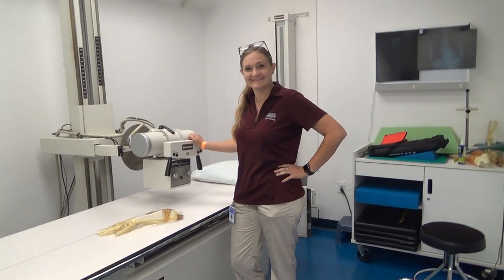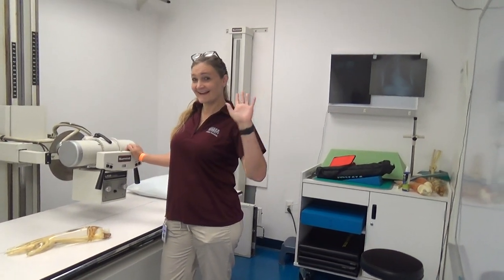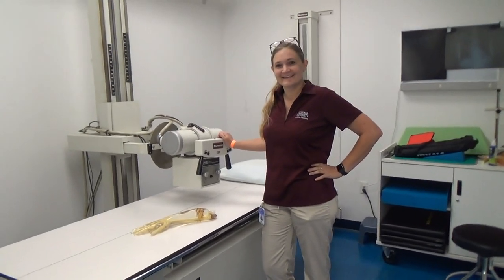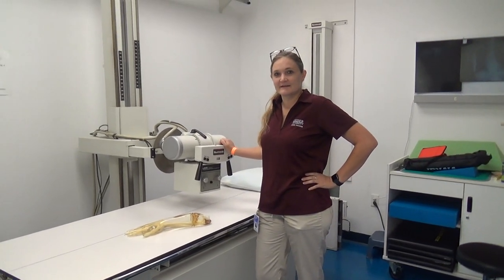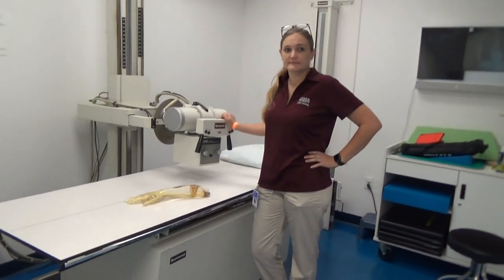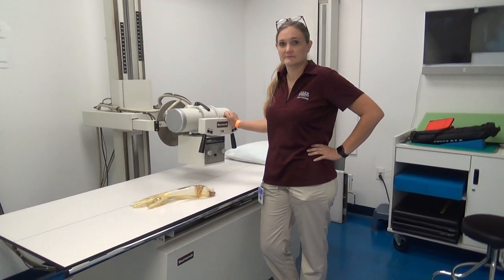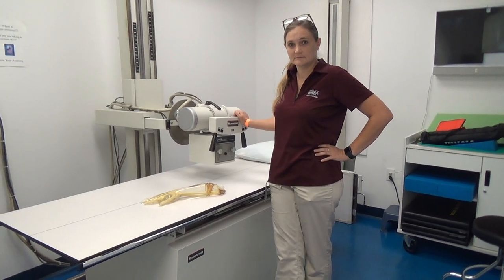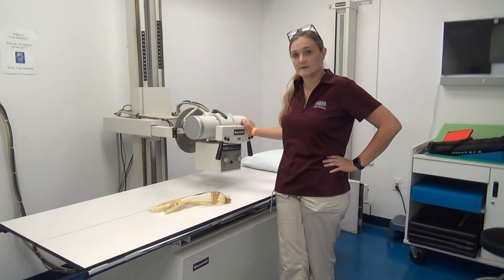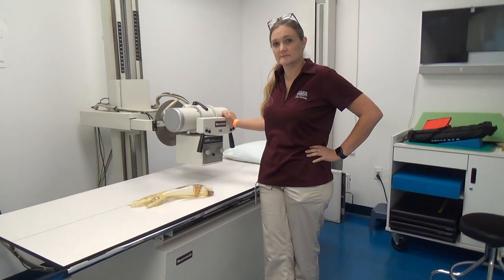Hello everybody. Coming to you live from the Kaiser University Radiology Lab, this is Mrs. Hardman and myself. We are going to walk you through some basic components of the x-ray room, the equipment here on the console. We're going to have sign-up times to come in so you can actually put hands on the equipment. When you do come in, remember that you need to power up your equipment.